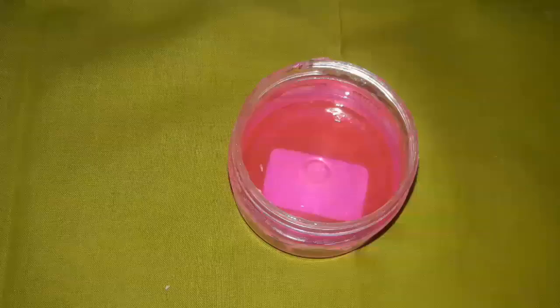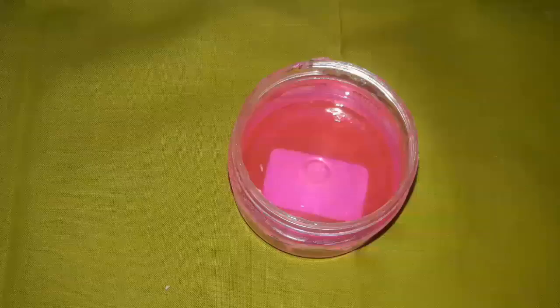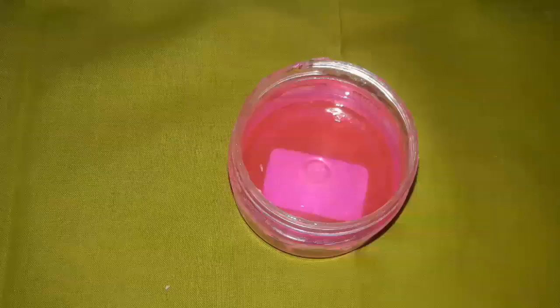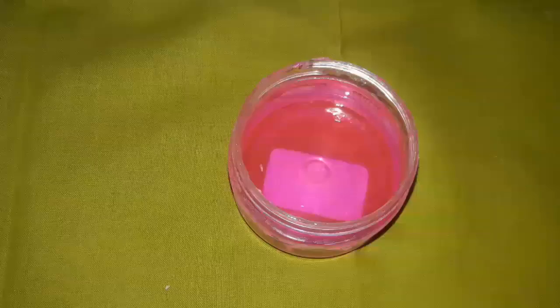This is called separating media, which is used to separate the denture base from the cast. There are many types of separating media. This is called sodium alginate separating media, which is popularly used. We can also use Vaseline as a separating media. As the name indicates, it separates the denture from the cast.